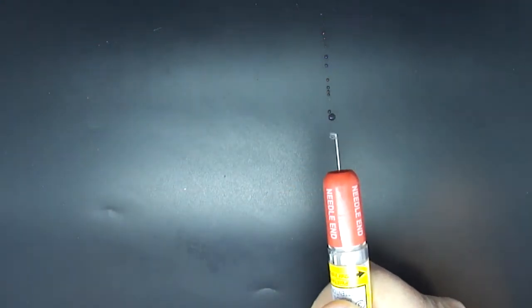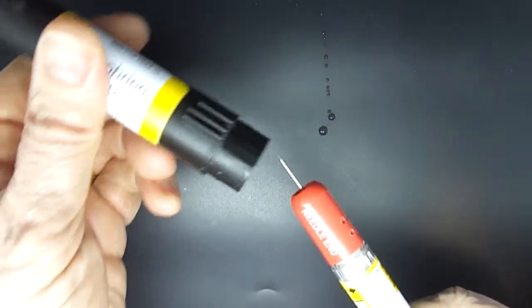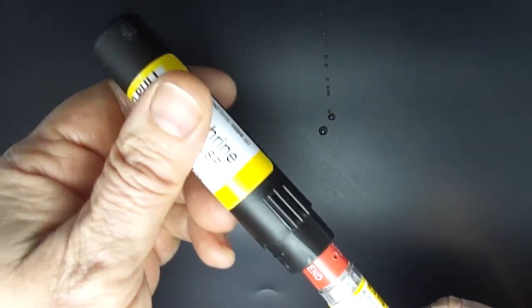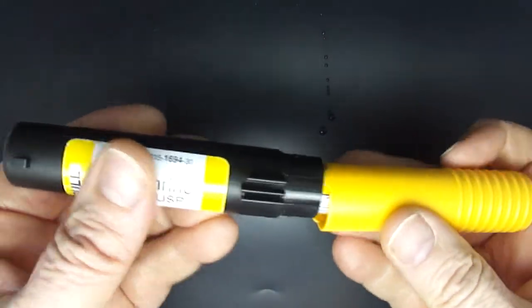It does not have a needle cover so you put it back in the case for safety to prevent needle stick injury.